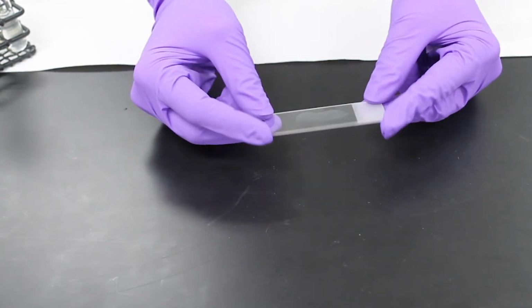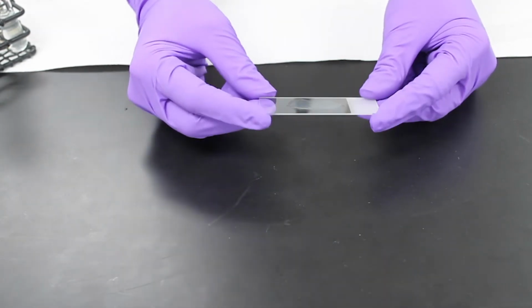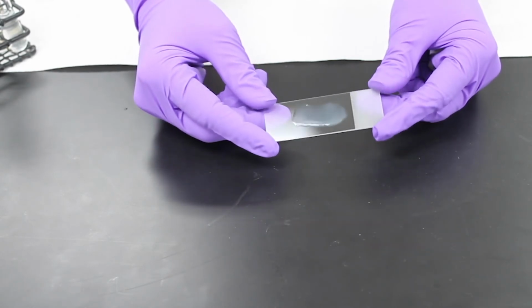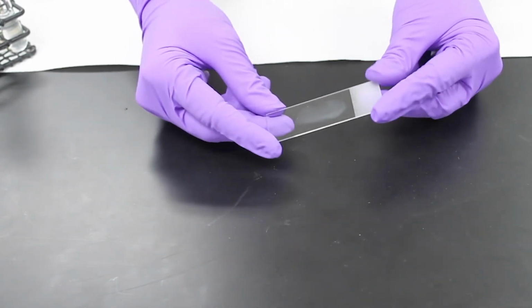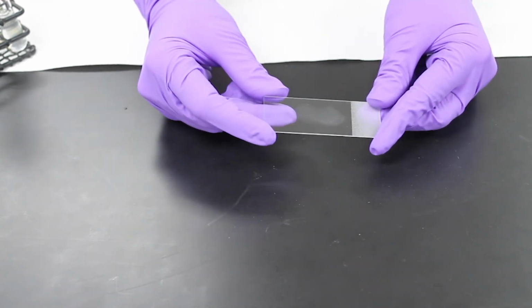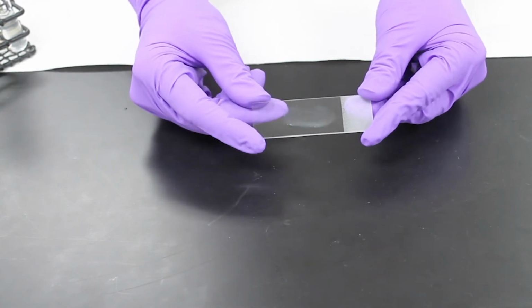And if it's not the freshest Salmonella, it will not agglutinate. So this test needs to be performed within your 24-hour incubation time on your blood agar plate to get a proper reaction. And it's starting to agglutinate. It's starting. It's slow. That's our test.